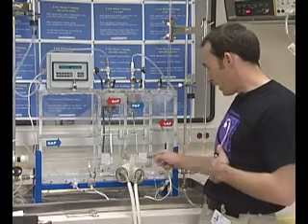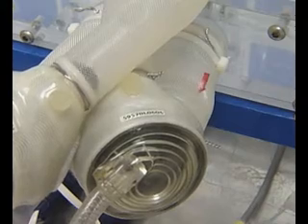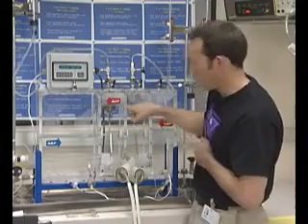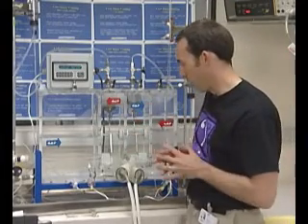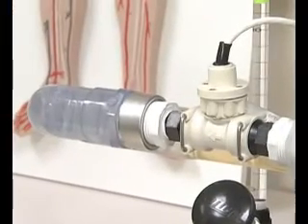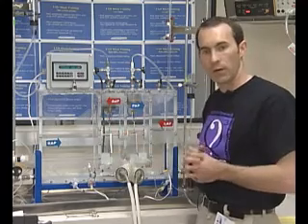That then flows into the device, giving us an inflow to the left side. It pumps, and the outflow is the aorta going out. That pressure is similar, and then there's a tube that goes through representing the body, back into the right atrial pressure, thus completing the loop.